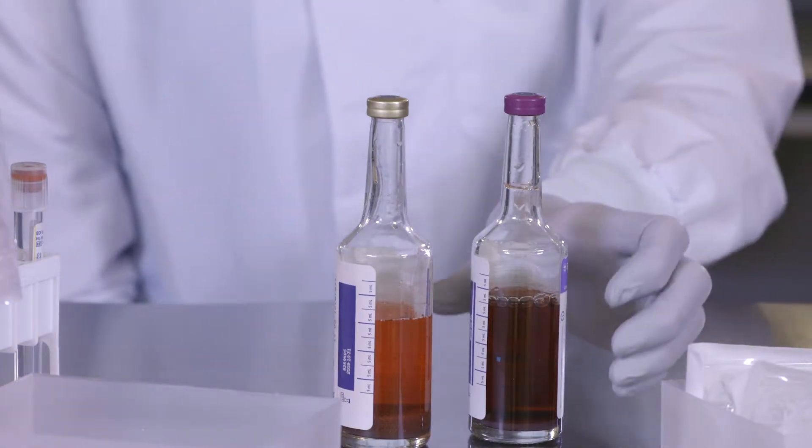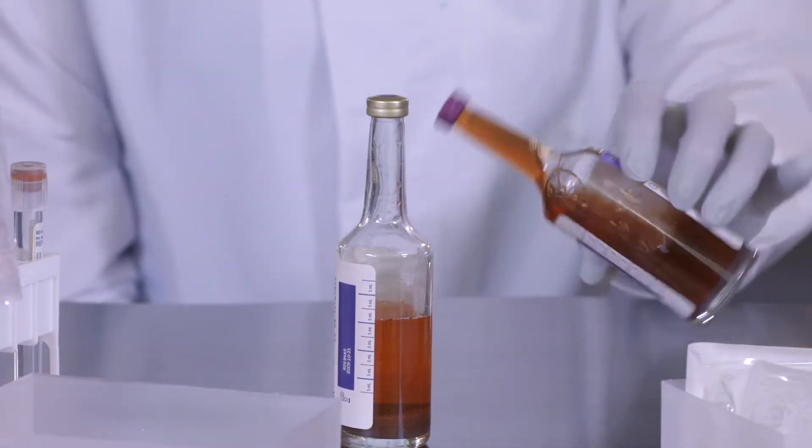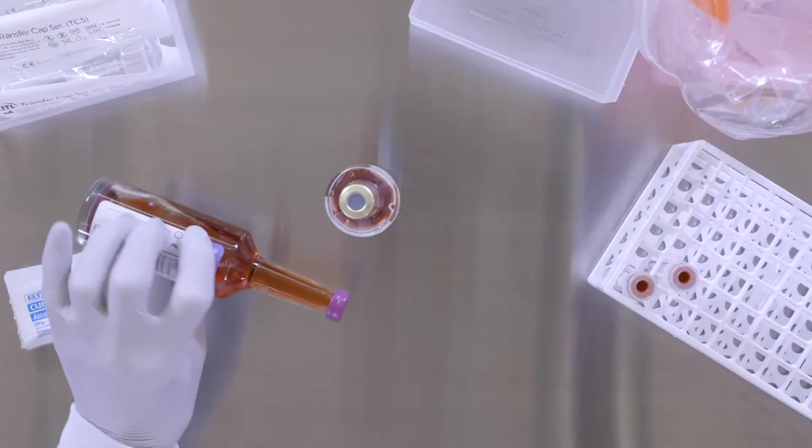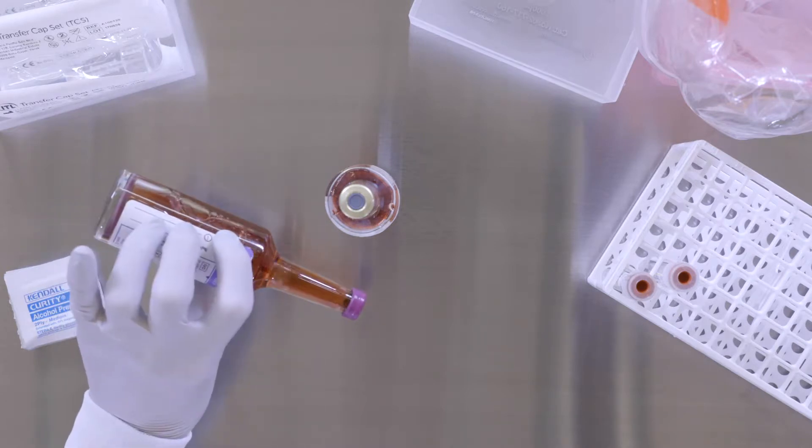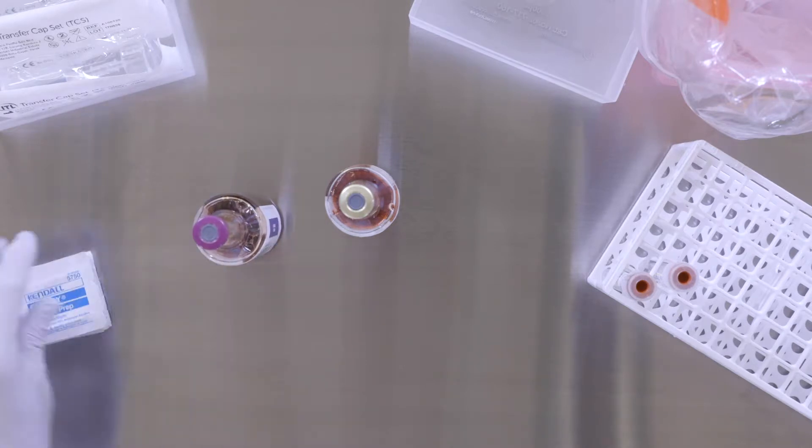Before starting the procedure, gently agitate the culture bottle to mix contents. When using bottles containing resin beads, allow the beads to resettle at the bottom of the bottle.